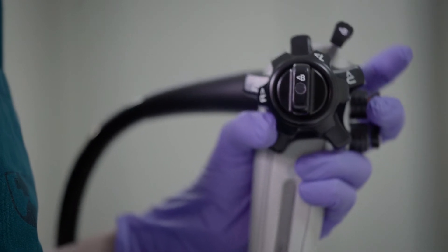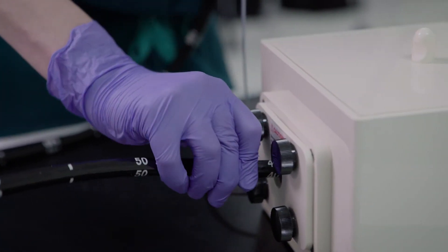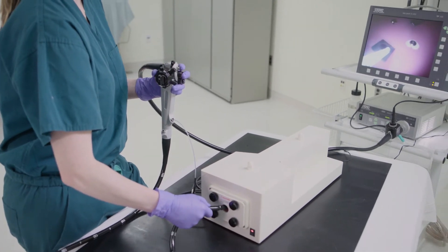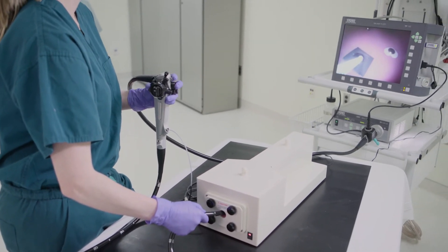Simulating the evaluation of the cardia of the stomach and distal rectum, the trainee learns to position the endoscope in retroflexion to identify and navigate to targets.